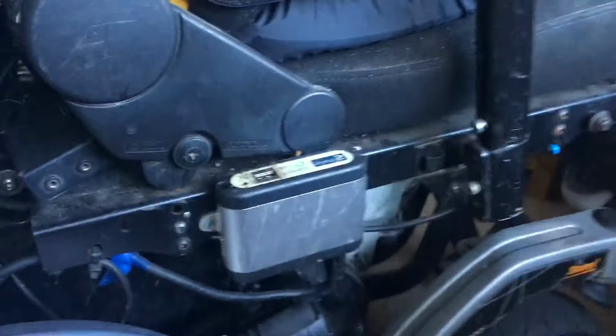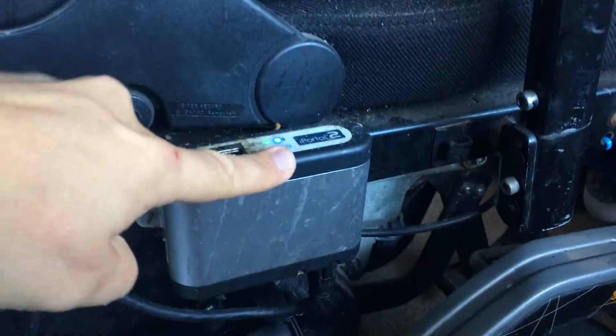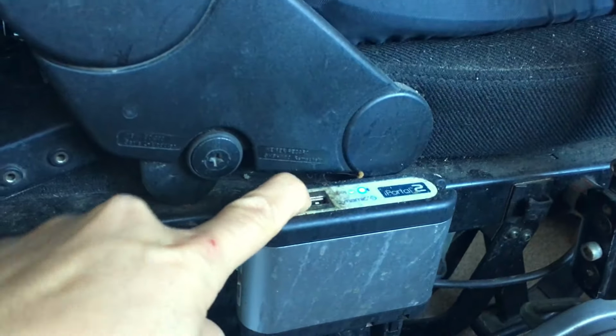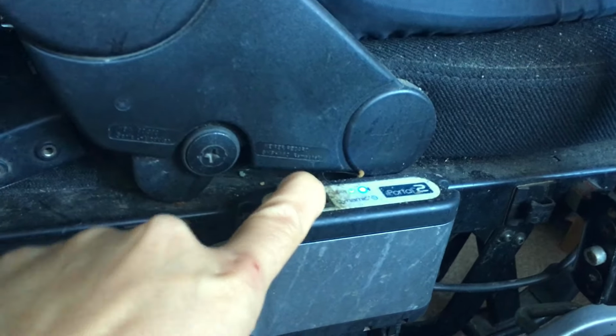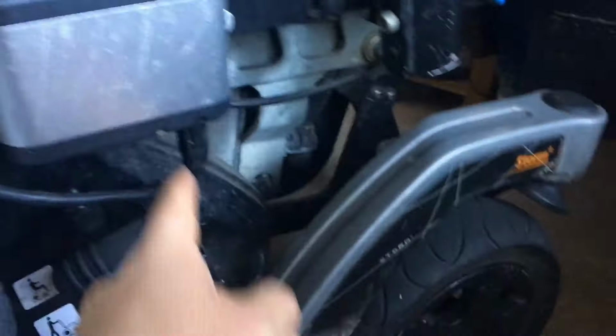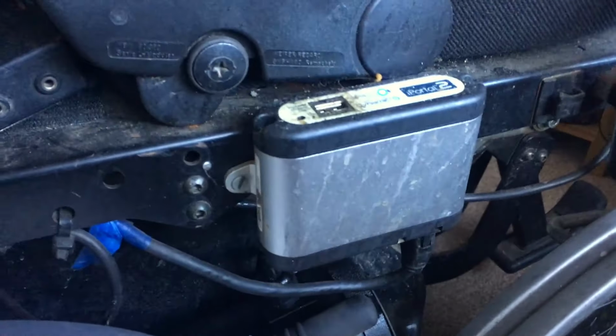I'm just going to give one little look at what's going on below your chair, if that's all right. So basically, underneath here, Andy's got this little unit, which is the iPortal 2. It actually has a USB slot in there, so he can charge his phone if he wanted to out and about on the go, or maybe anybody else's if they needed to. And it basically is powered in by one cable, as you can see, into what they call the DX2 bus. So there's a whole lot of wiring under the chair, and you just plug it straight into the bus.